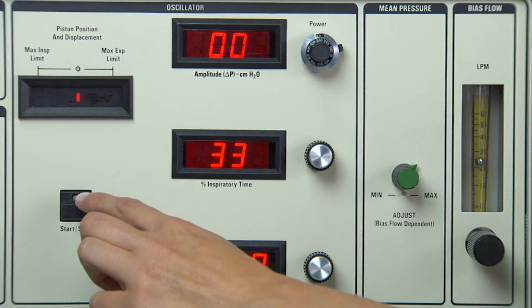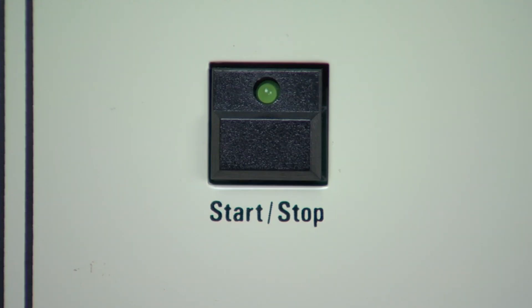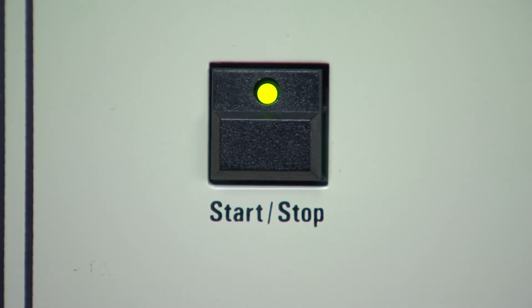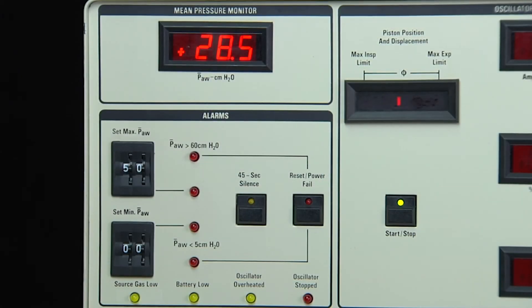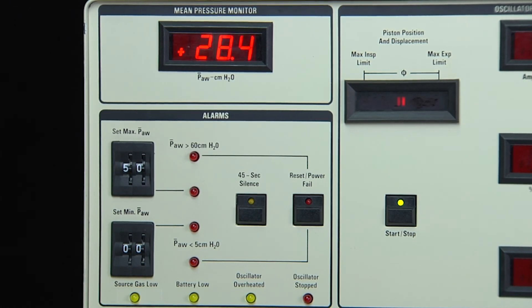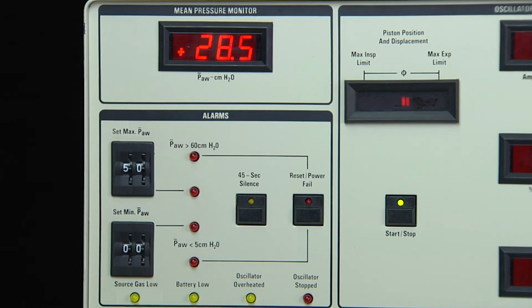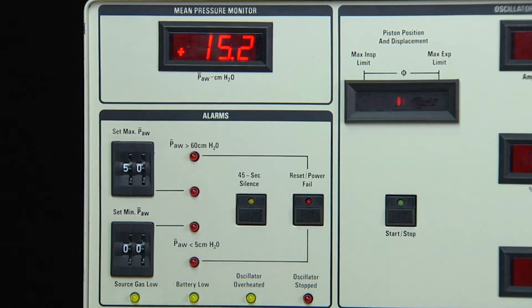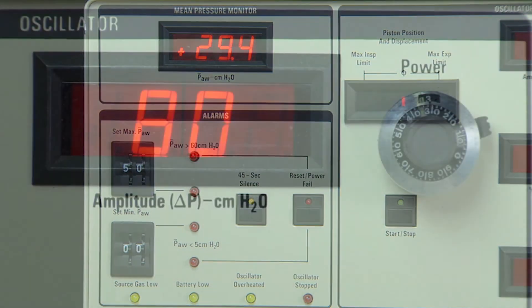To activate the oscillator, press the Start-Stop button. The green LED will illuminate, showing the oscillator circuit is energized. The mean airway pressure must be at least 5 centimeters of water pressure in order for the oscillator to activate. The oscillator may be stopped without complete loss of mean airway pressure, allowing for auscultation of the patient without the loss of lung volume.